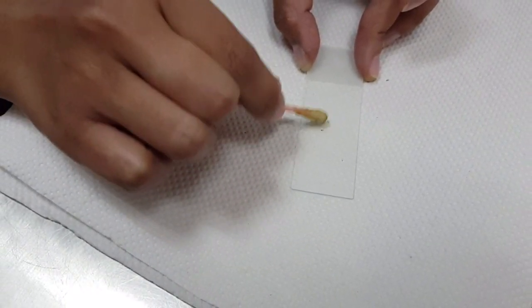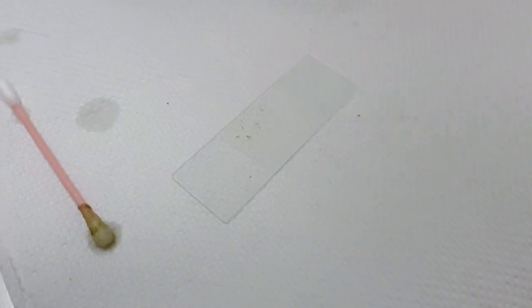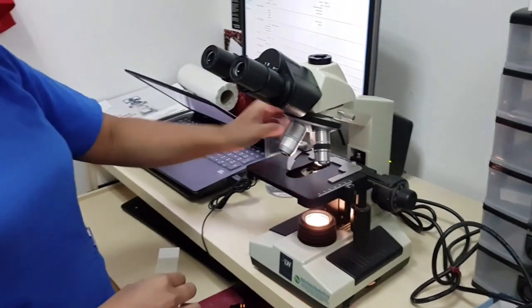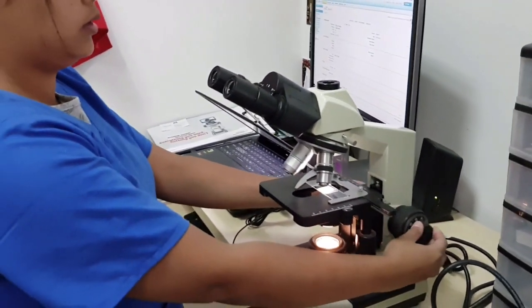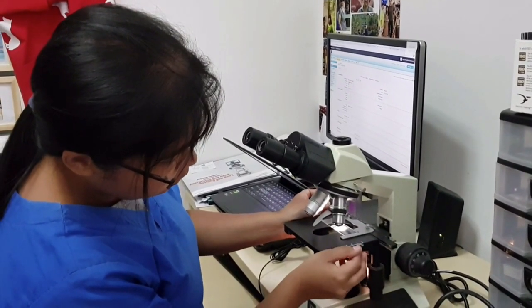The veterinary nurse has smeared a sample on a microscopic slide. What is this sample? Where did this sample come from? What is the nurse doing? And why does she need the microscope? Is there anything that is present in the sample that she needs to check for?